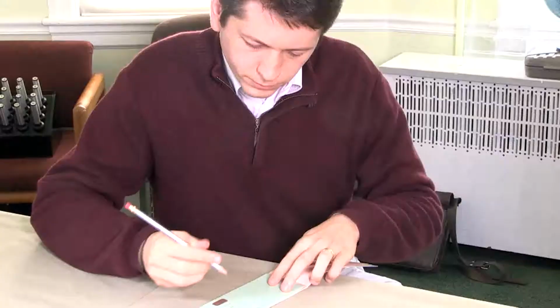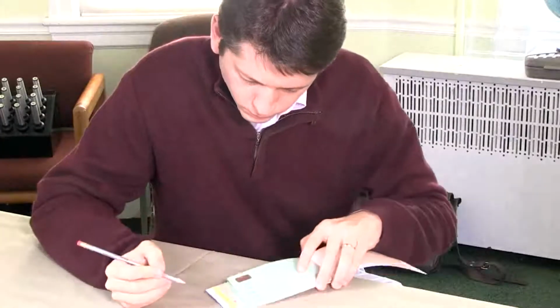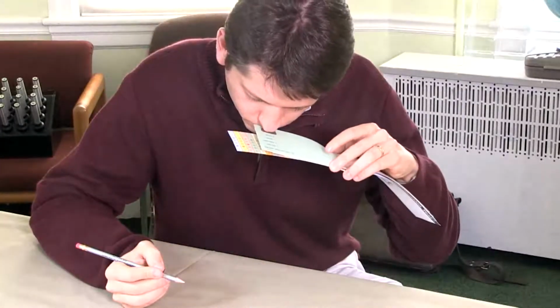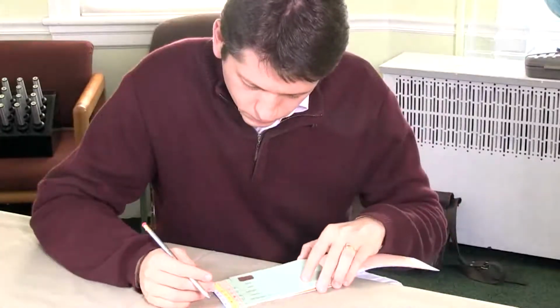Now, some subjects will complain that they think it's strange that they can't smell the odor if it's a different type of odor, that they are forced to make a choice. And the important thing is to emphasize to them that it's really critical that an answer be made on every single item, or there's no purpose of doing the test.